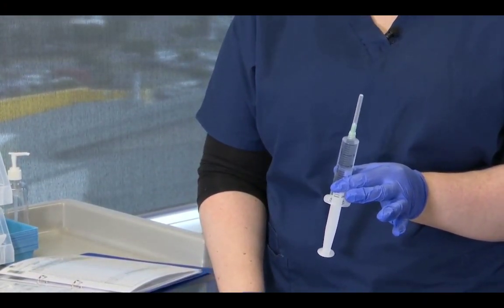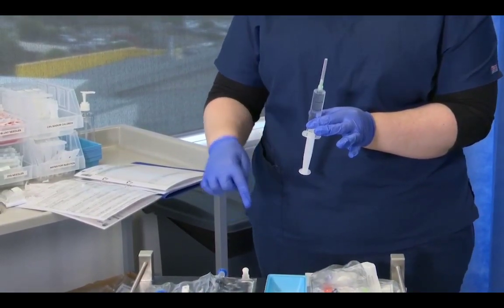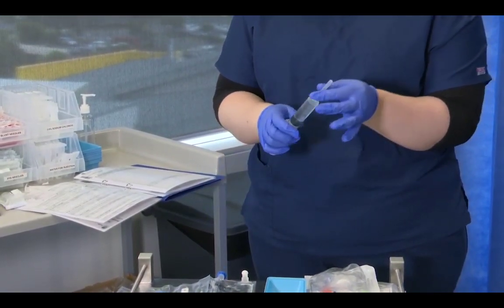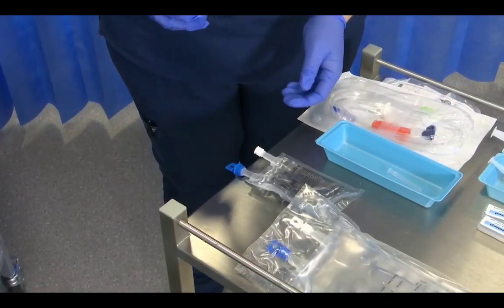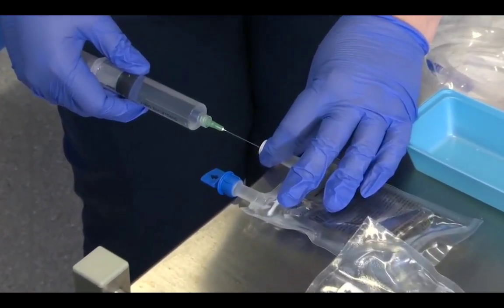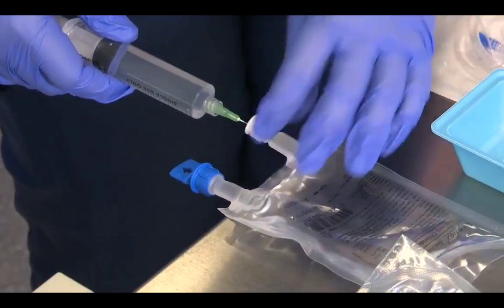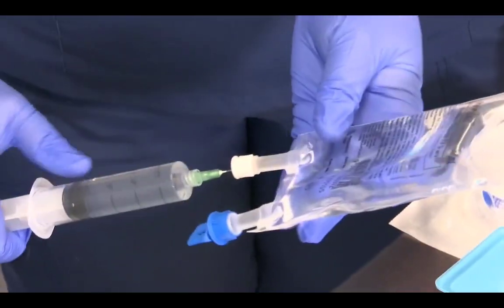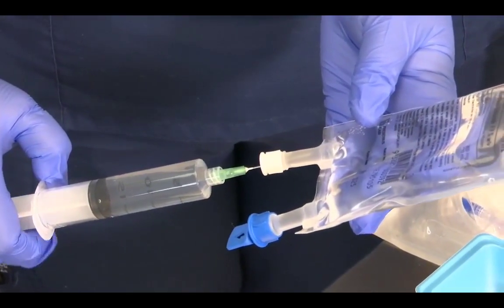Using the same port, it's the white port again, remembering that anything in or out of the bag except for the spike goes via the white. So the needle cap comes off into the tray so we can recap. Again, holding the white cuff and going in straight. We inject through the membrane and we can inject our 20 mils into the bag.